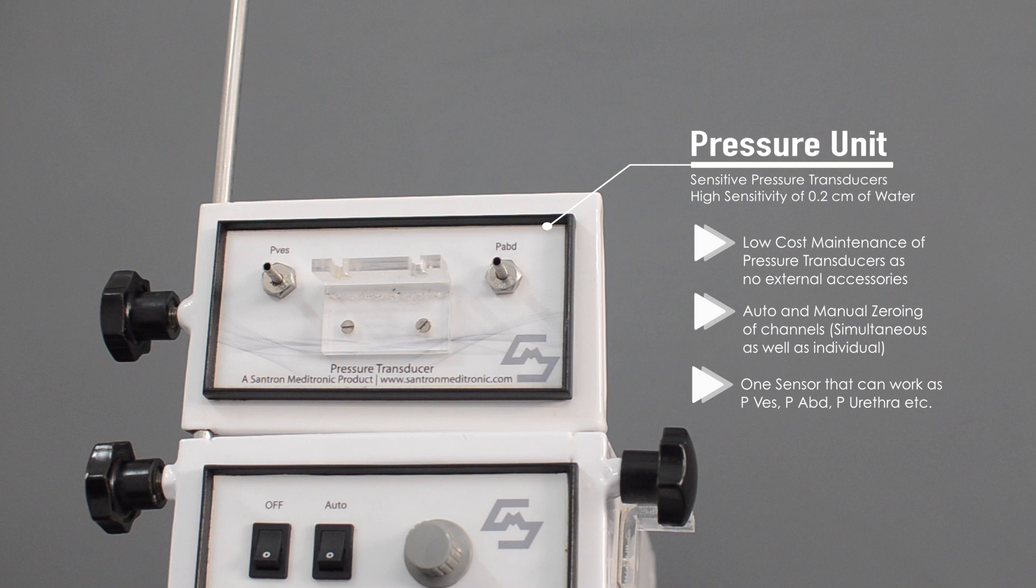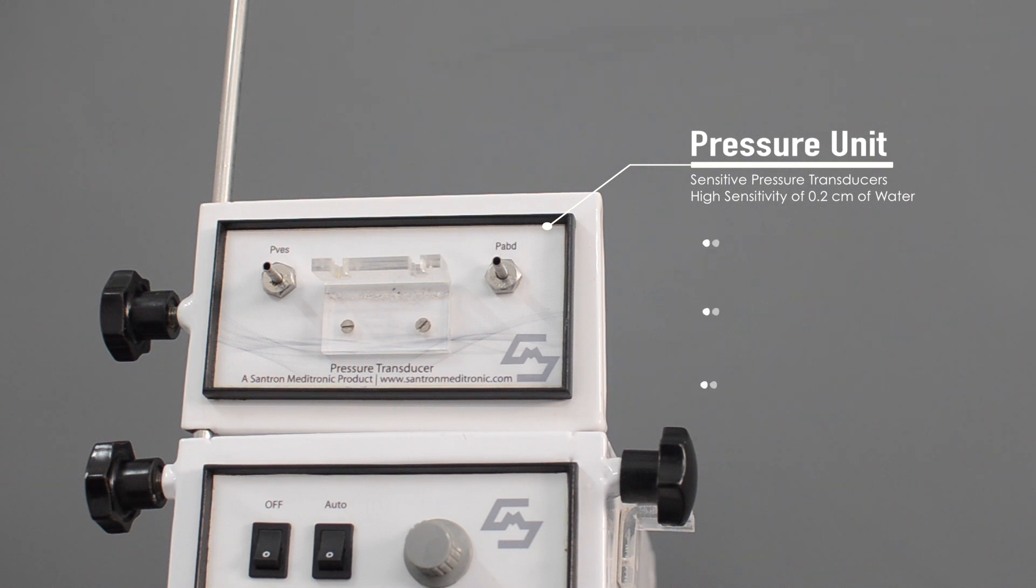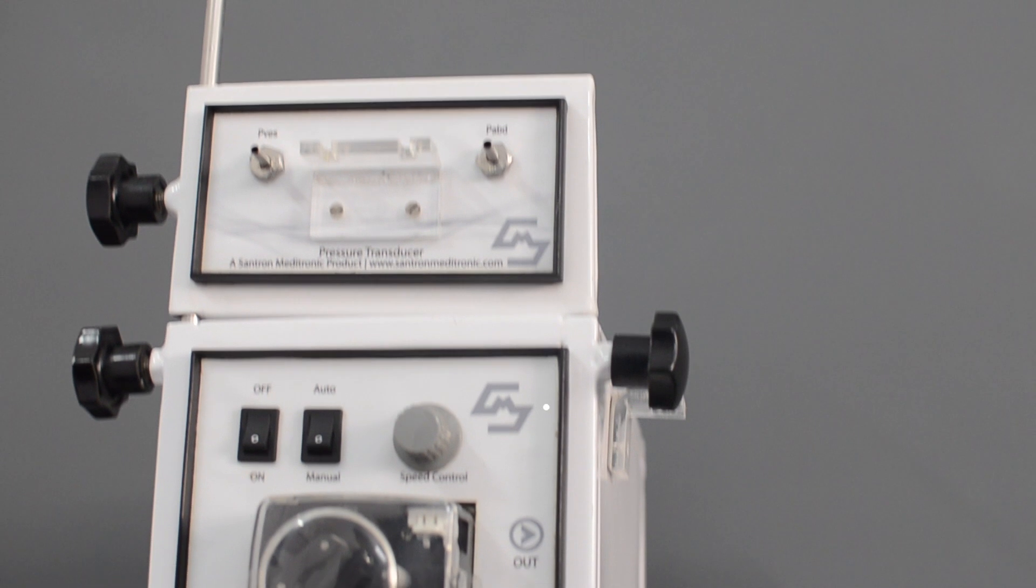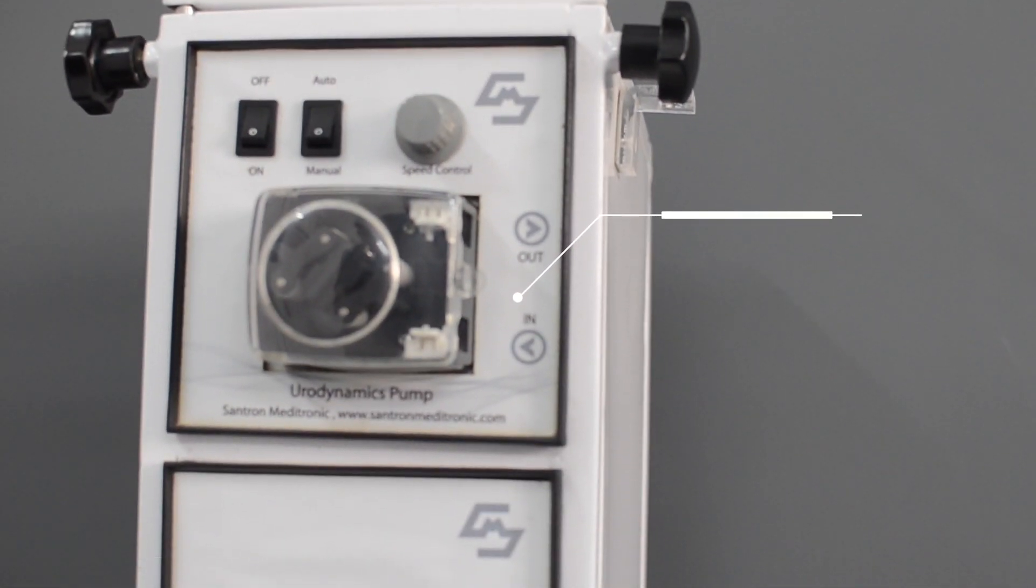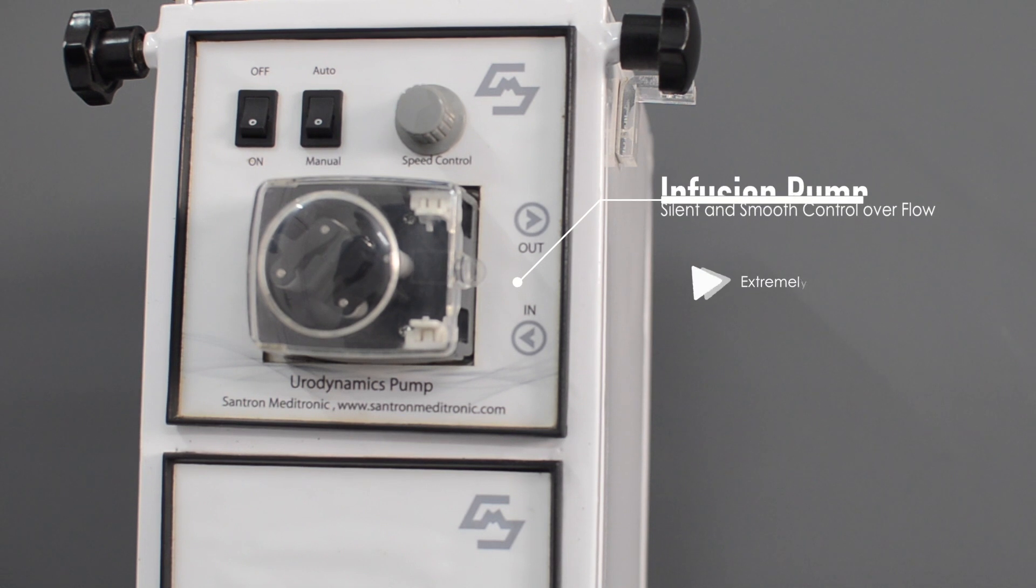The Urodynamics pump unit has a silent and smooth control overflow, does an extremely silent operation with replaceable silicon tubings that are locked.